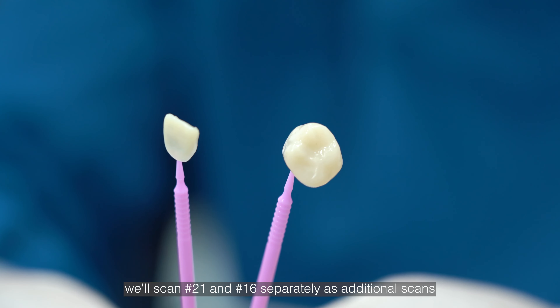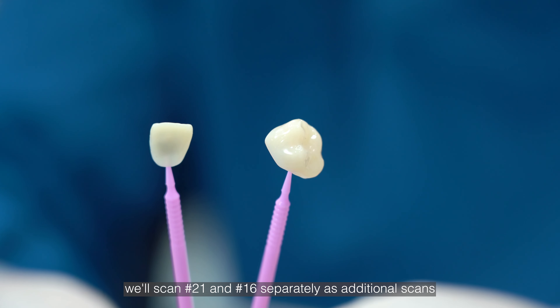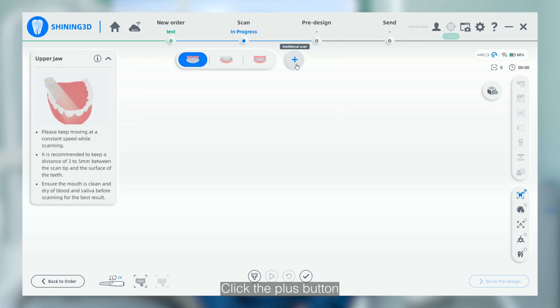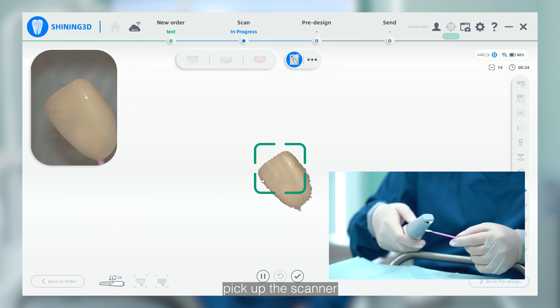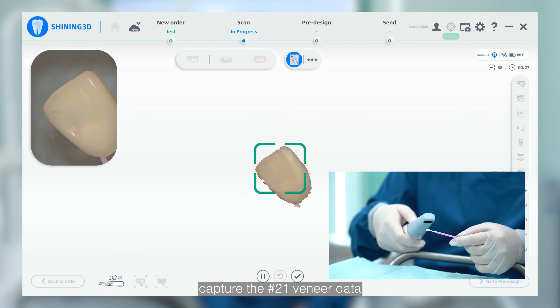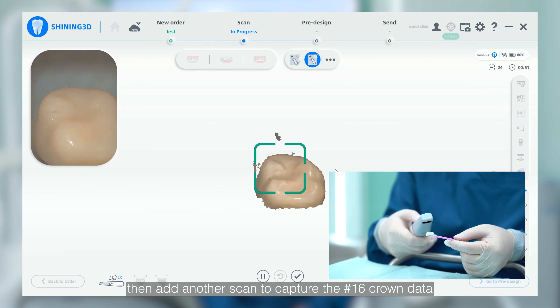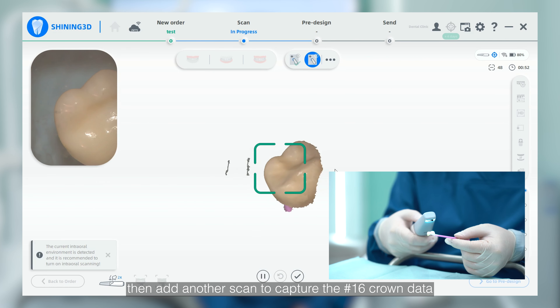In this project, we will scan No.21 and No.16 separately as additional scans. Click the plus button, pick up the scanner, capture the No.21 veneer data, then add another scan to capture the No.16 crown data.